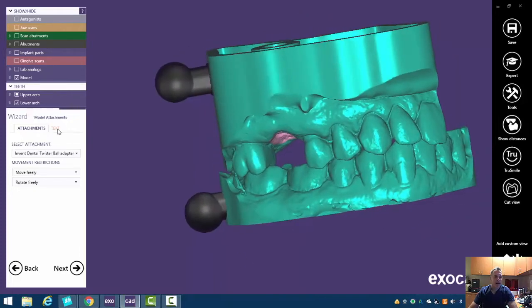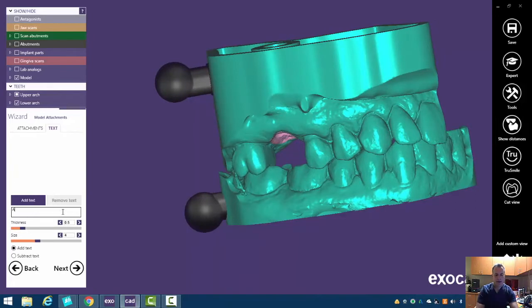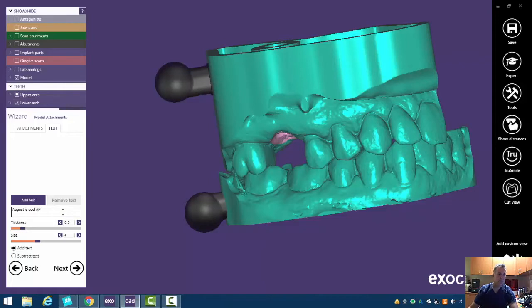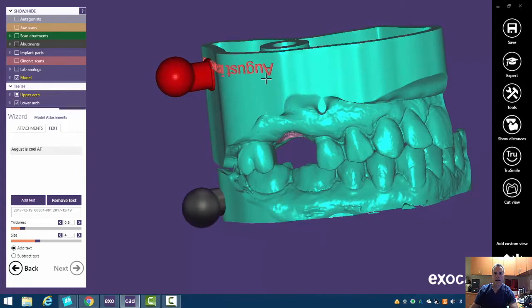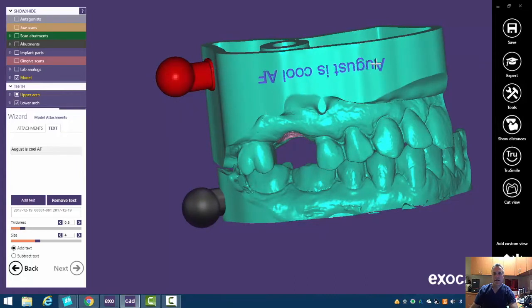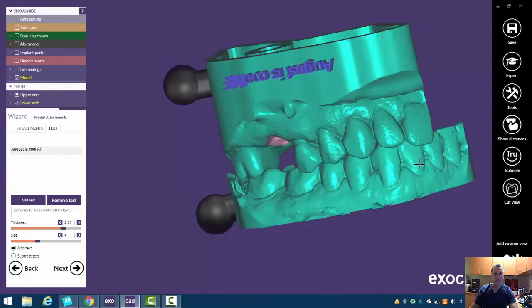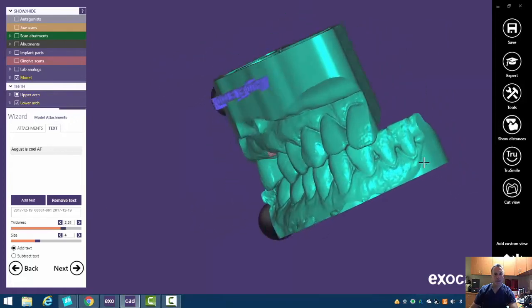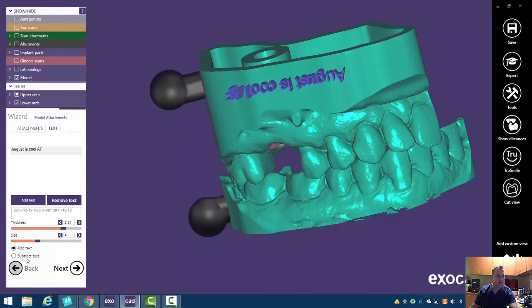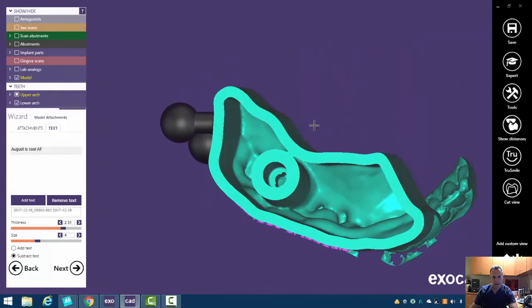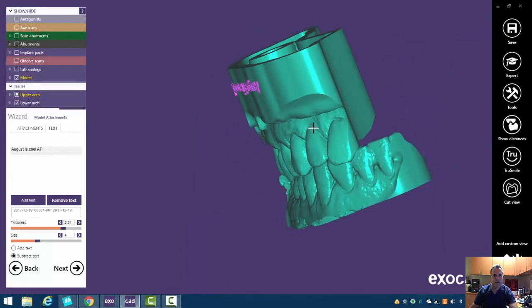We can also add text if you want to. And so we can write here a little sand. If we click add text, we just click and we can move that text around. We can change the thickness of it, make it really come out if we wanted to or even invert it so we can subtract it, make it kind of go in a little bit, change that thickness.